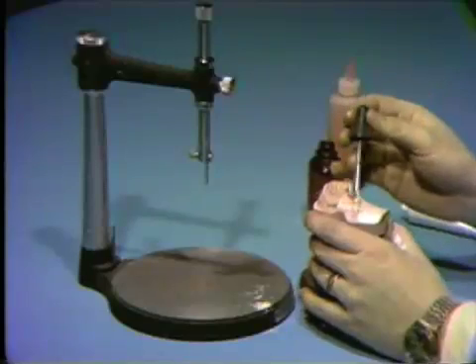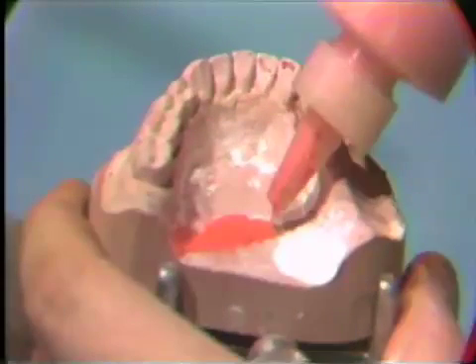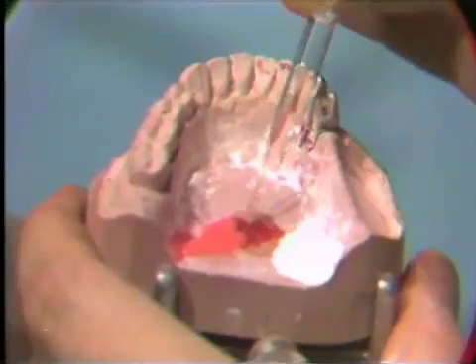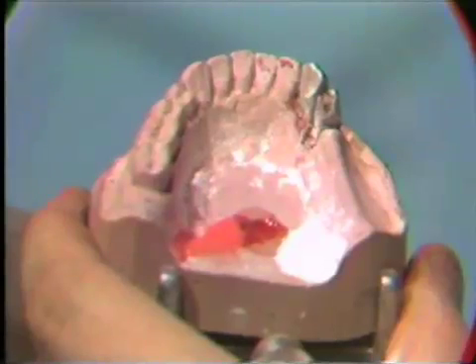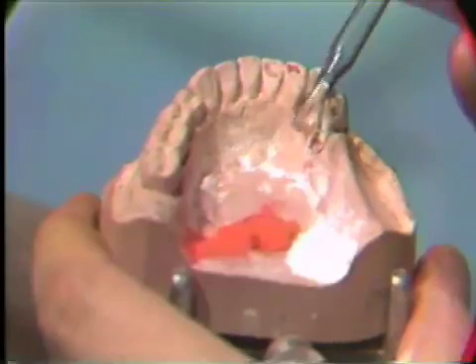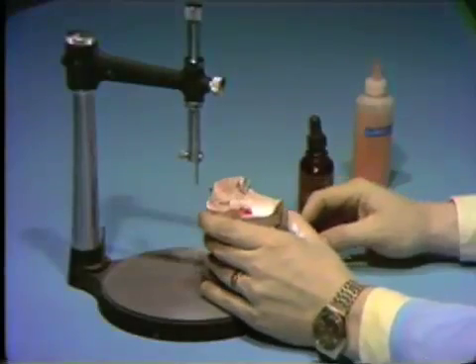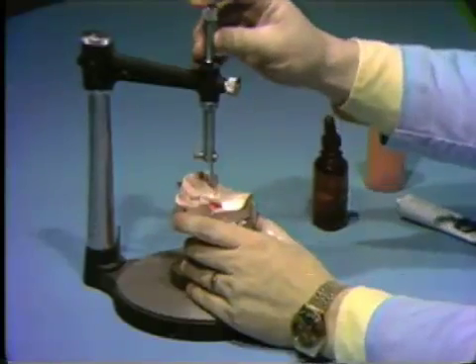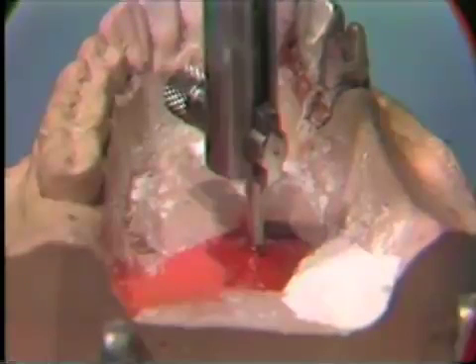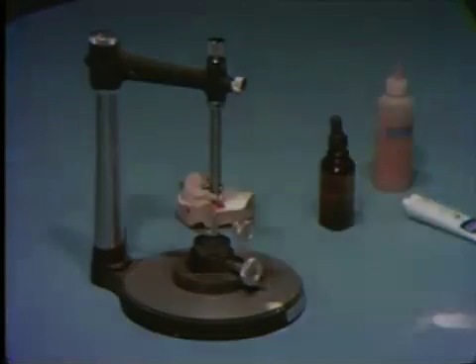Now, fill the hole in the base of the cast with some Duralay by alternately sprinkling powder and liquid into the hole. While the Duralay is still wet and pliable, lower the surveyor spindle until the metal rod has been inserted deep into the wet Duralay. Allow this Duralay to set and dry for at least 10 minutes. Do not move the surveyor spindle, the rod, or the cast during this setting procedure.